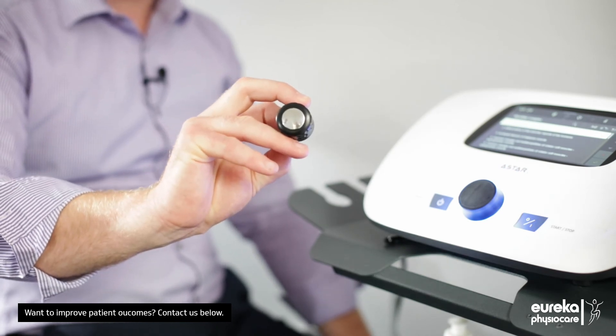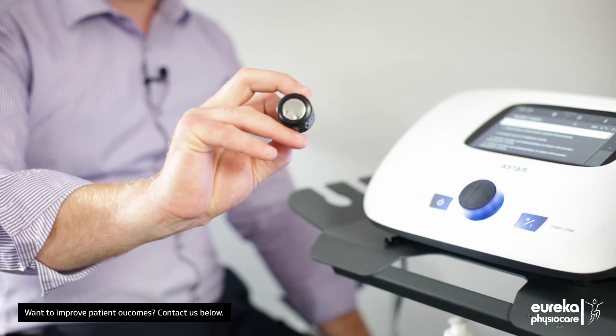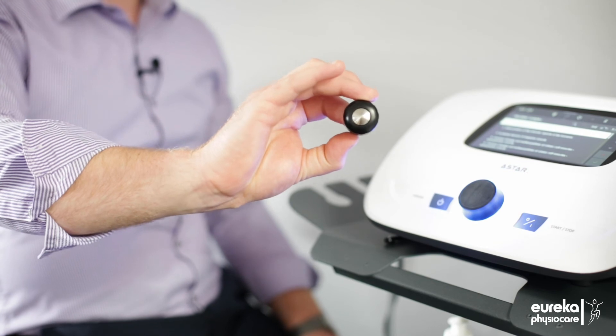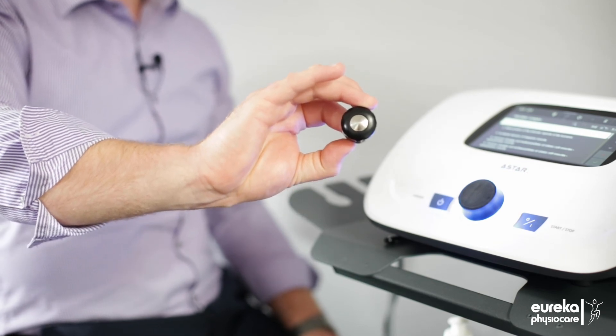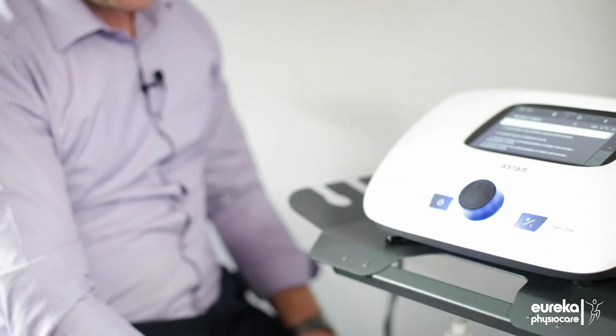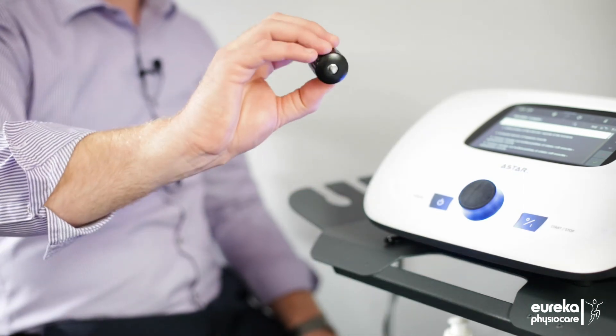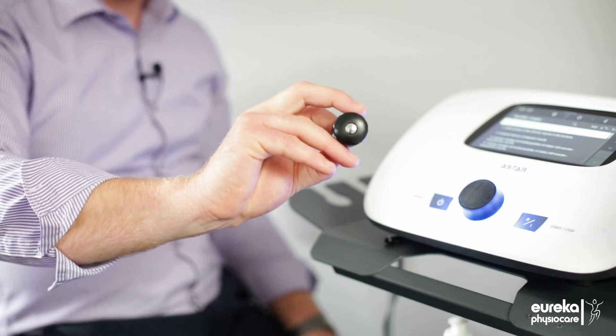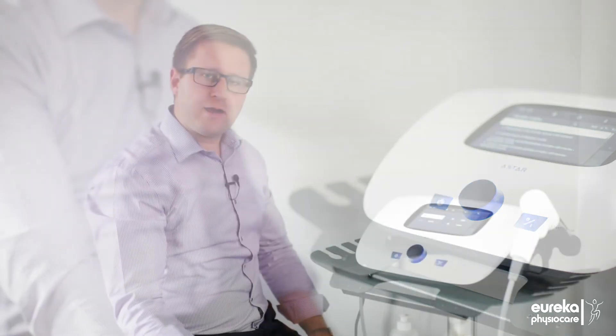Also a 15mm titanium head, which is for the deepest impact head, and then a 10mm radial head also.